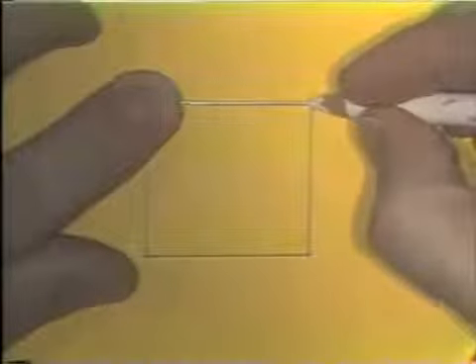To start, the wire is placed over the first leg of the pattern, and a mark with the marking pencil is made right at the corner of the pattern on the wire. The wire is placed in the beaks of the plier just to the short wire side of the mark, bending the wire over the round beak of the plier with the finger. The bend is made 1/3 of the way.